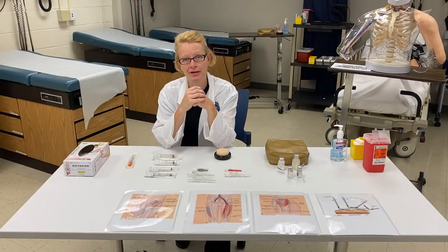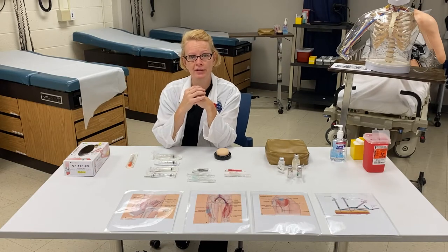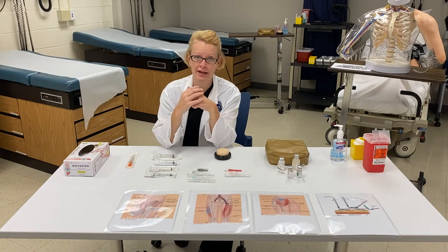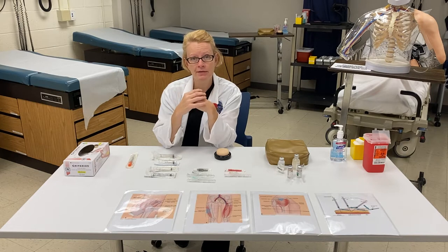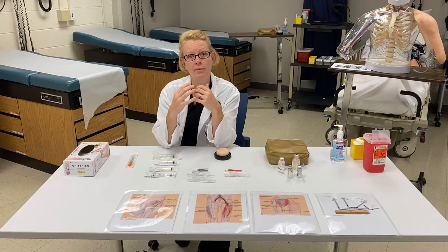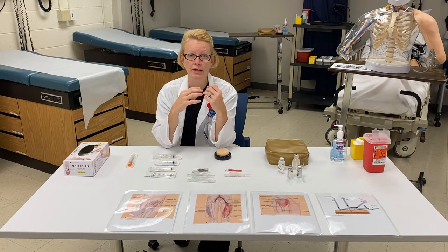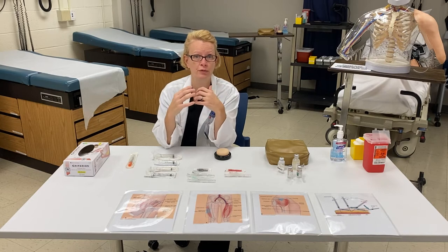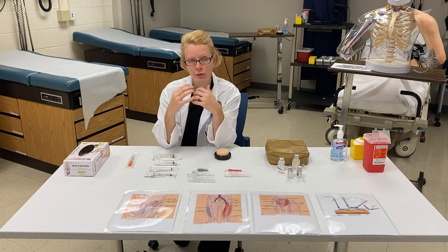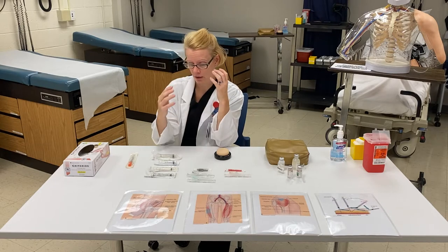Hi everybody, Professor Oh here. Today's tutorial is on the anatomy of a syringe and the anatomy of a needle. Sometimes it can be very confusing when you go into the med room and you have to decide what syringe to use or what needle to use in order to draw your medication. I just wanted to go over that quickly to help you guys understand it a little bit better.